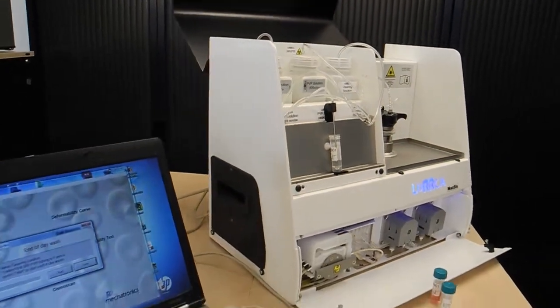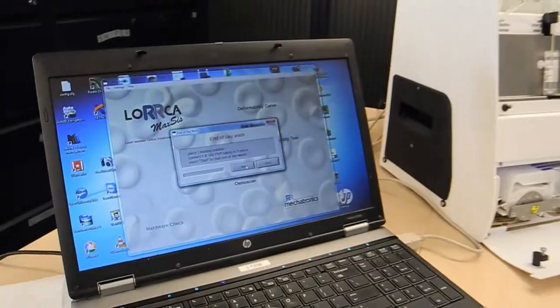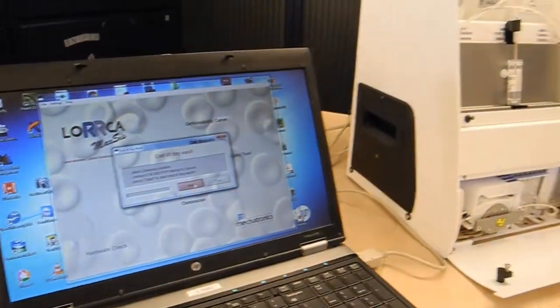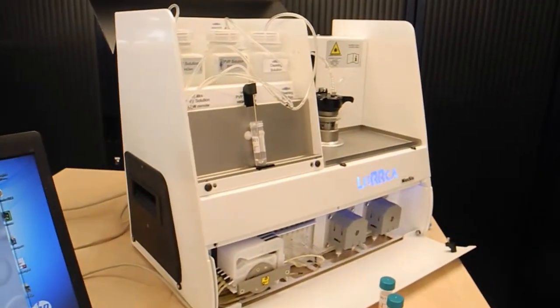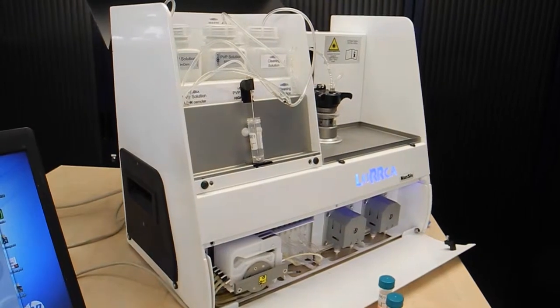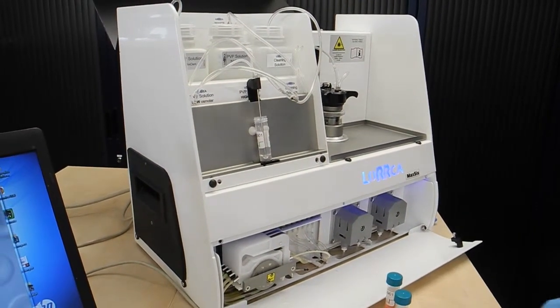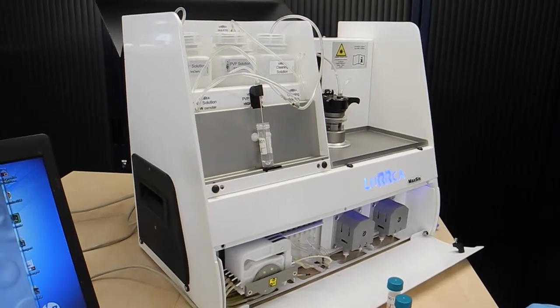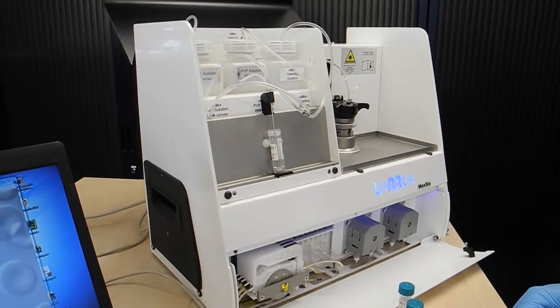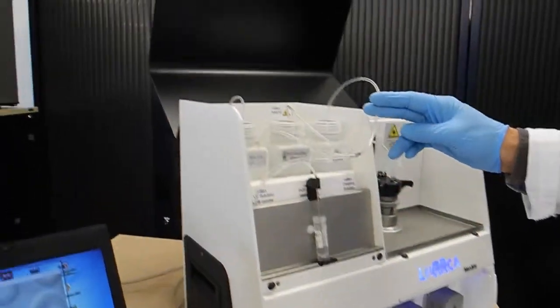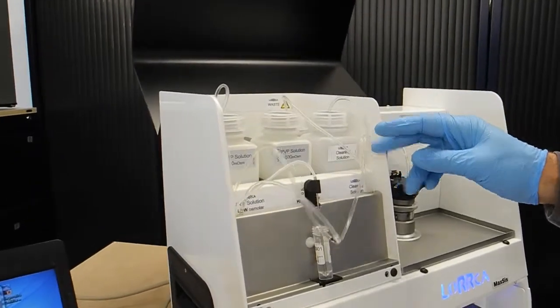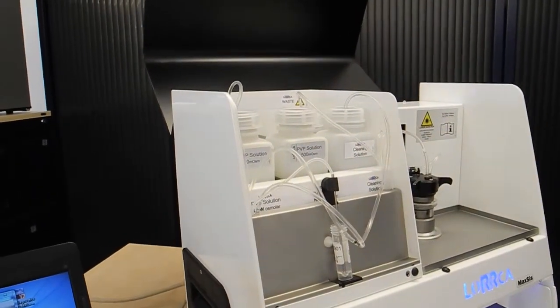Then I press start to start running the cleaning procedure where the cleaning solution is pulled through the lines.